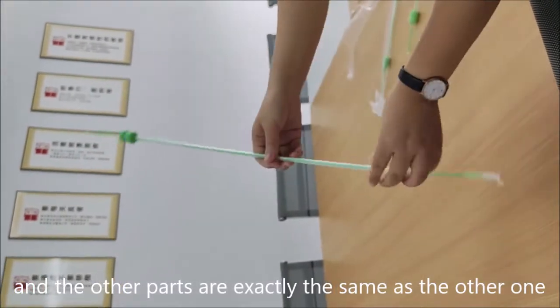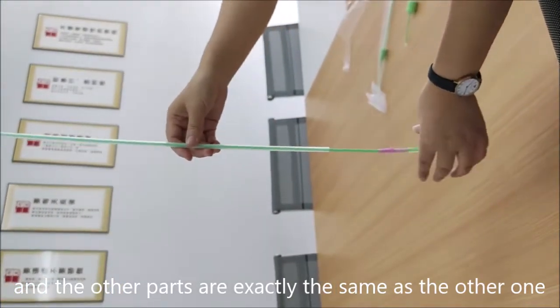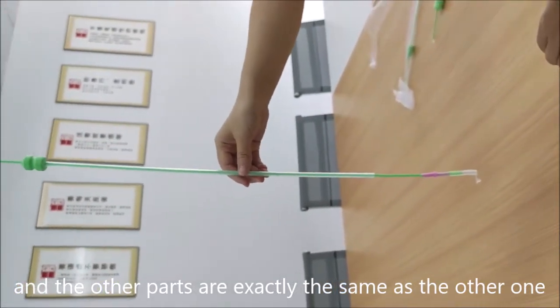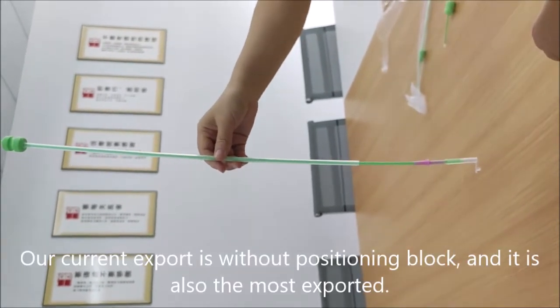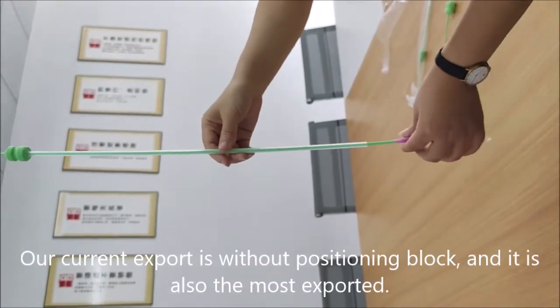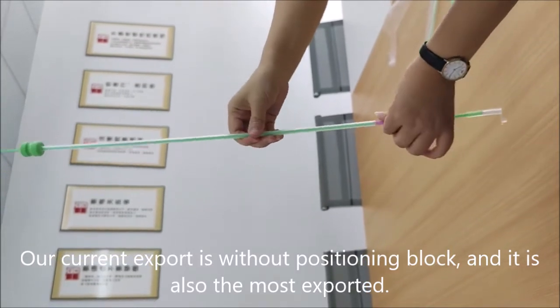The other parts are exactly the same as the other one. Our current export is without positioning block, and it is also the most exported.